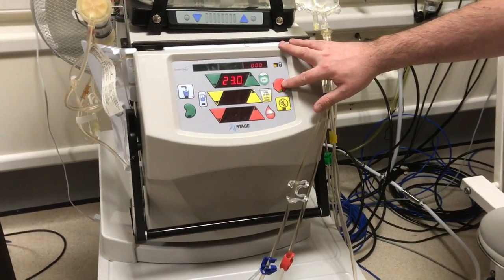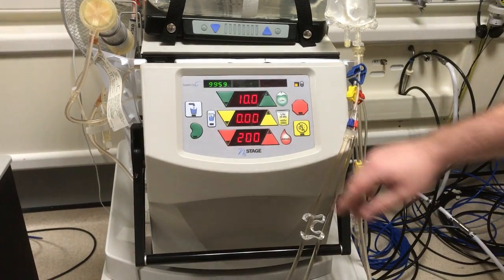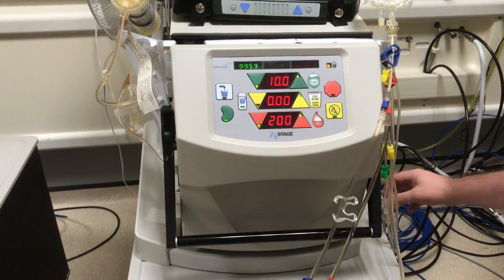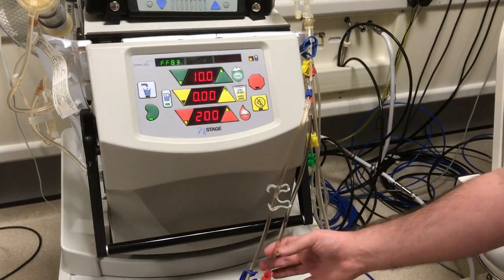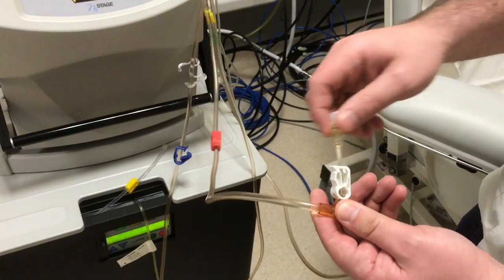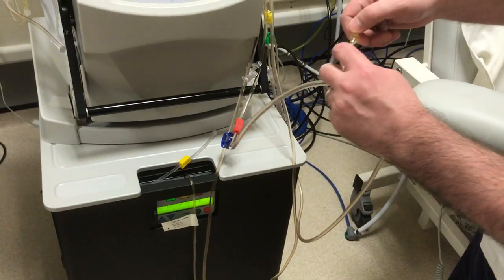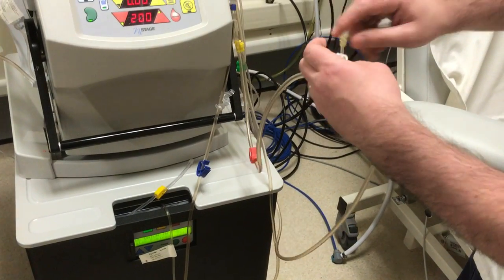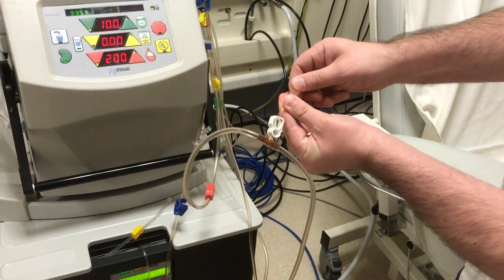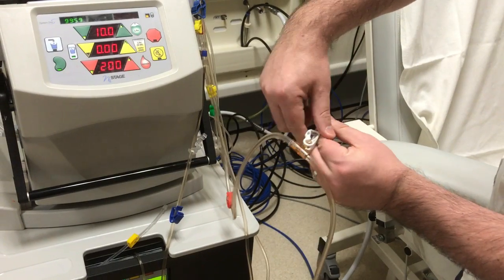So we can now come to the machine and press stop. It will now come up with the presets ready. We're now going to look down our arterial line which is our red line and we're going to look for our saline T. What we're going to do with our saline T is prime the air out of the line here. We literally open the cap, take a little bit of the air out, close it off. Do use a container to contain the water.